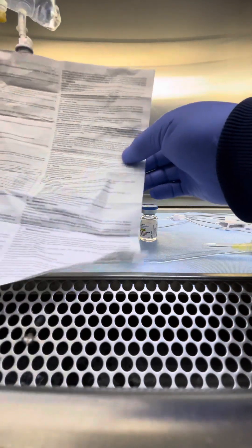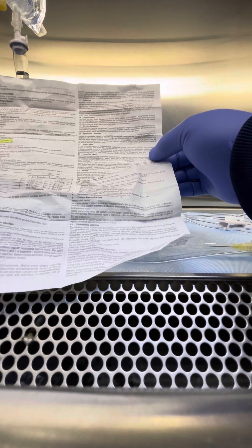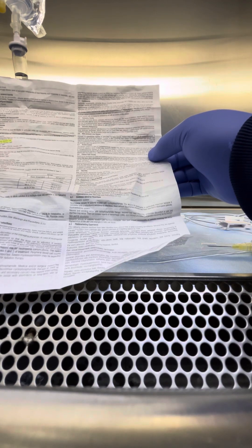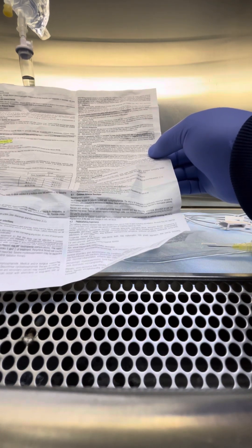Or you can mix it in half normal saline, D5 dextrose, or D5 dextrose and normal saline. So, we're going to use normal saline.